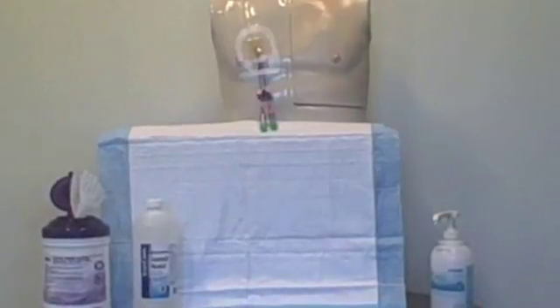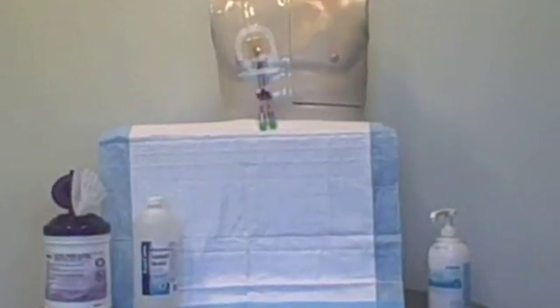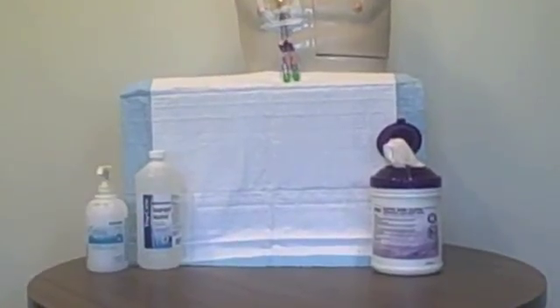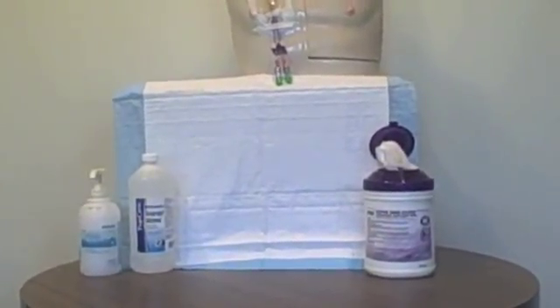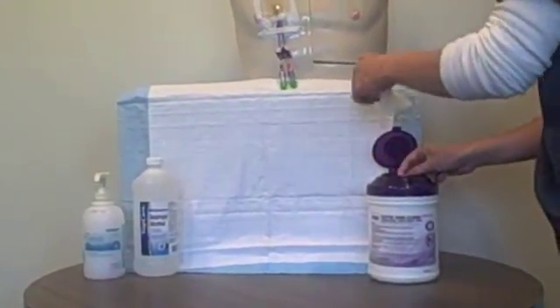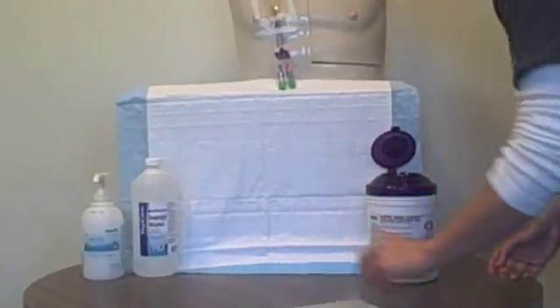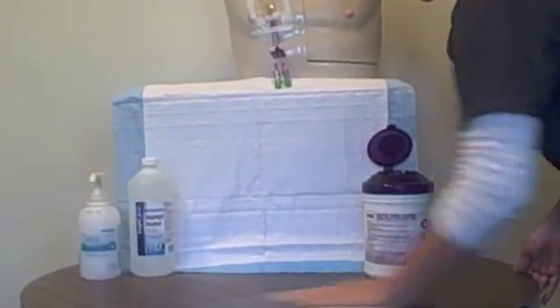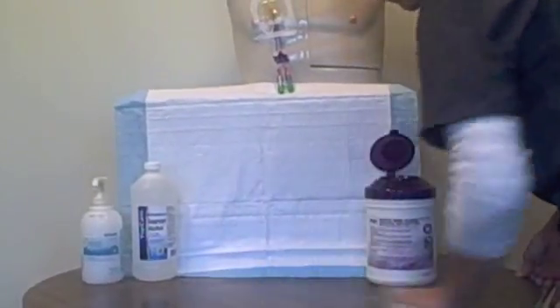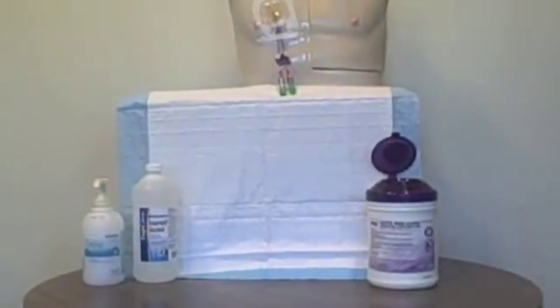Prepare a clean work surface. Use surfaces that will not absorb liquids, for example, Formica, plastic, metal, or marble. Do not use wood or tiled surfaces. A clean cookie sheet works very well. Wash the work area with alcohol or antibacterial wipes and allow the area to dry.